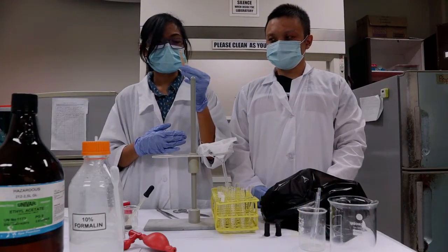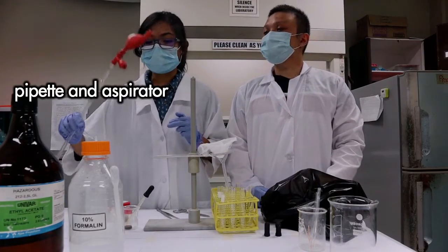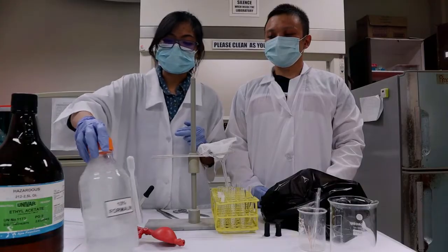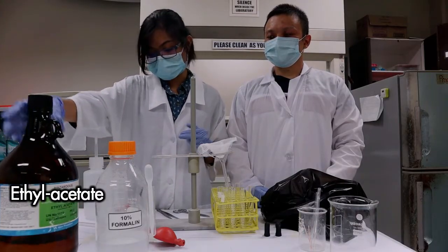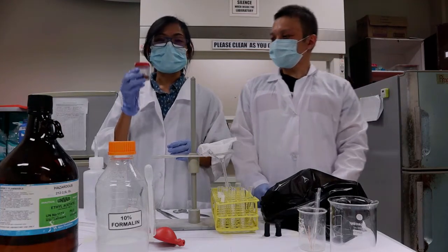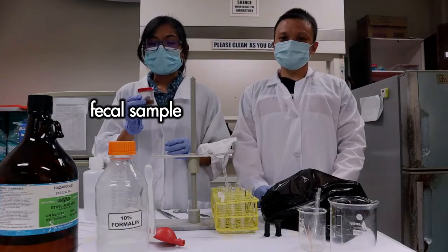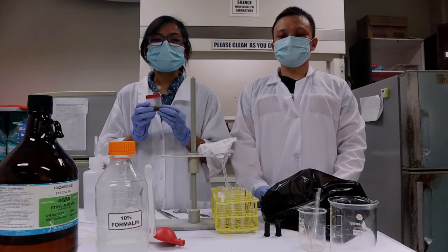you can improvise like this. We can use toothpicks, a pipette and a pipettor, and our reagents, which are the 10% formalin and ethyl acetate. And most importantly, you also need to have the fecal sample. 2 grams of fecal sample in 10 ml, 10% formalin.